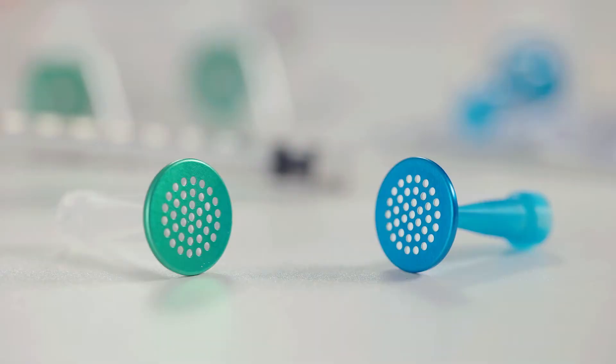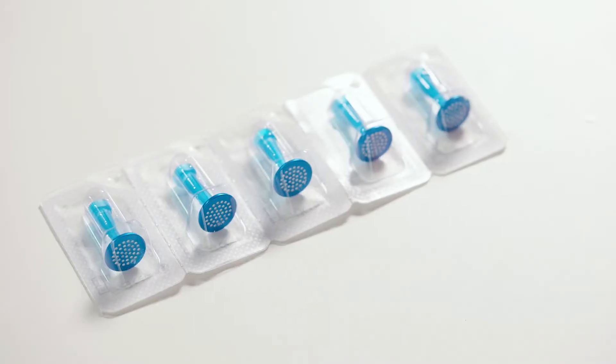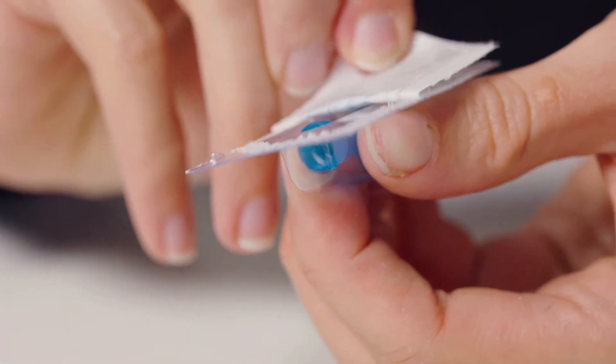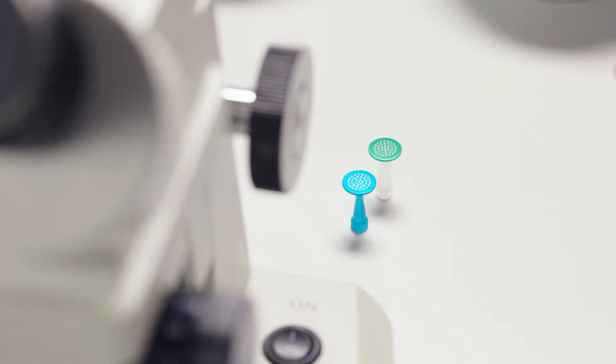This video will demonstrate how to correctly use SteriFilt Fast and SteriFilt Plus. SteriFilt filters are an important development in the field of harm reduction in injection drug use.